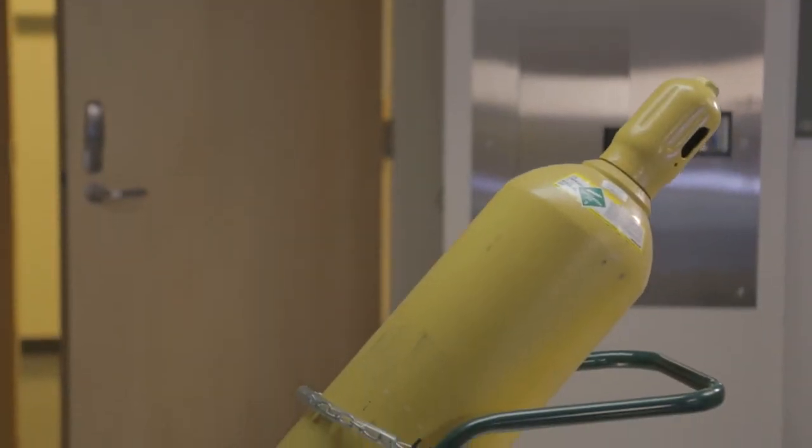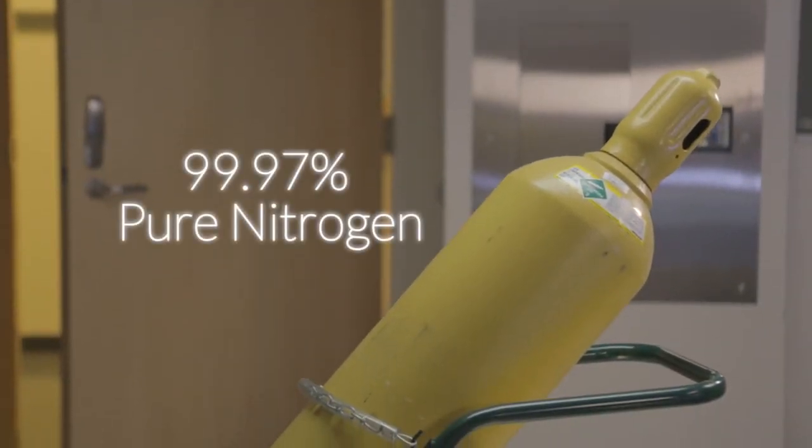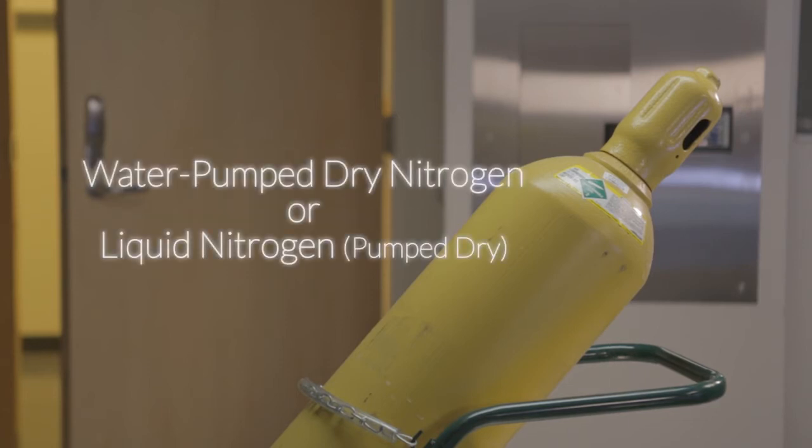If using nitrogen as the power source, it should be 99.97% pure nitrogen. For quality assurance, the nitrogen should be water pumped dry nitrogen or liquid nitrogen that is pumped dry.